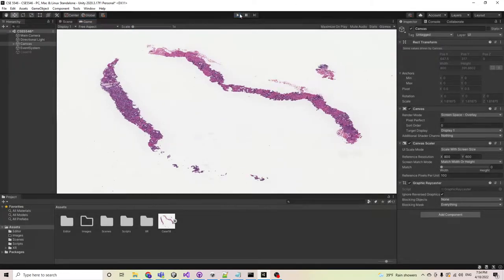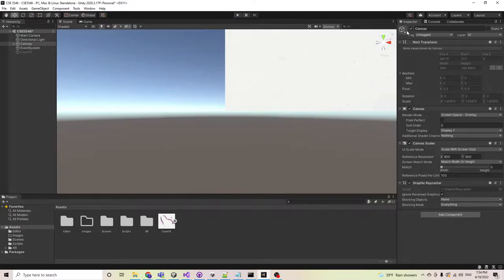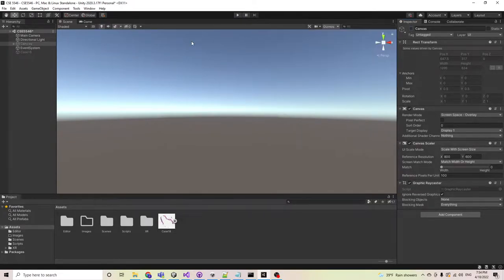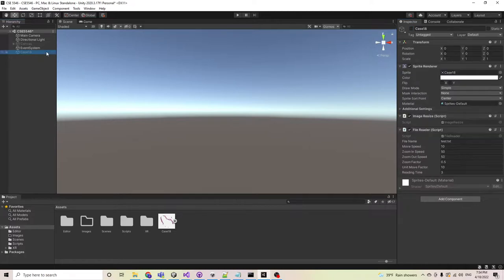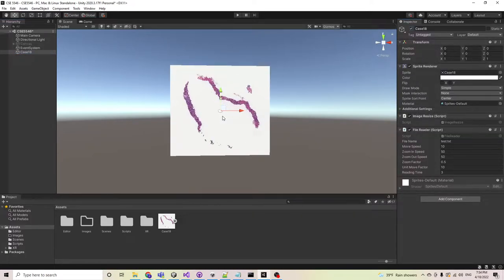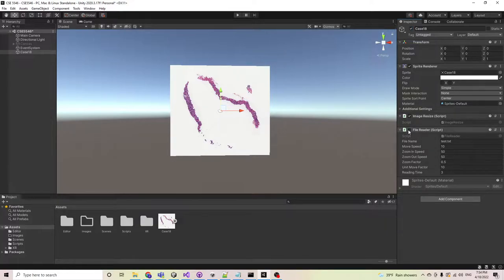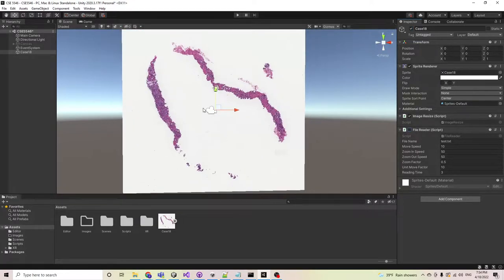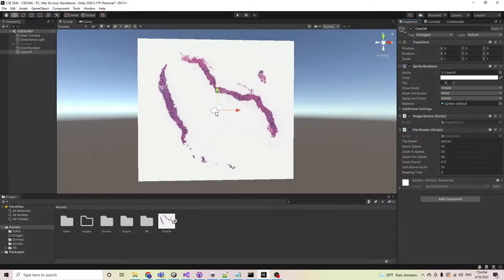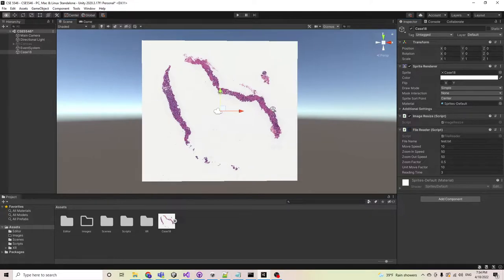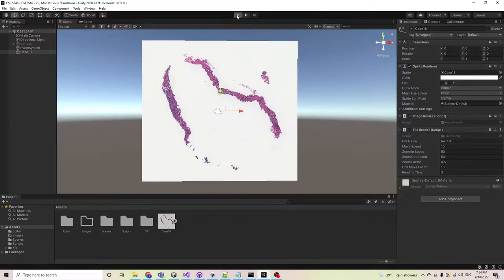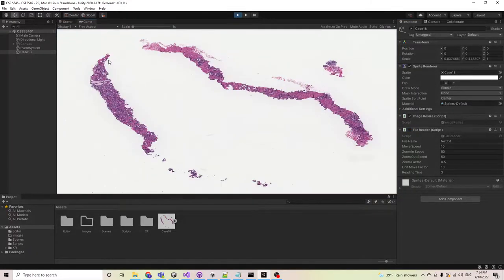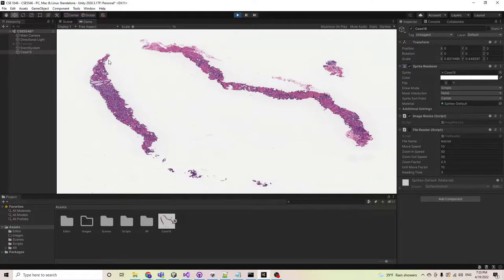The second mode is zooming mode, where we need to disable the canvas and enable the case image. Also, we don't need the file reader—that's for mode 3. For the zooming mode, when we start the program, the image will be resized to fit the game screen.